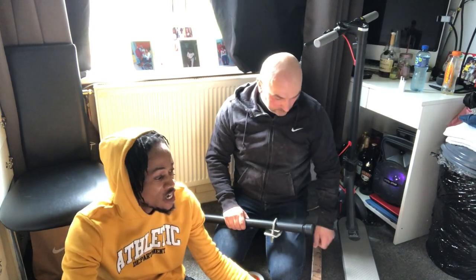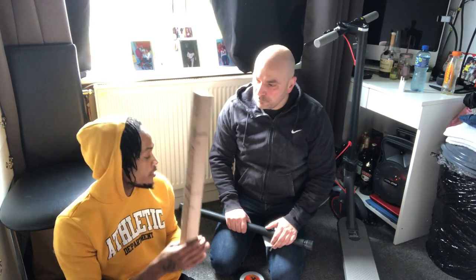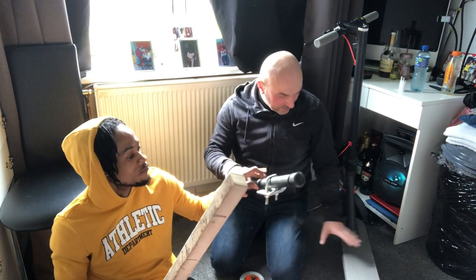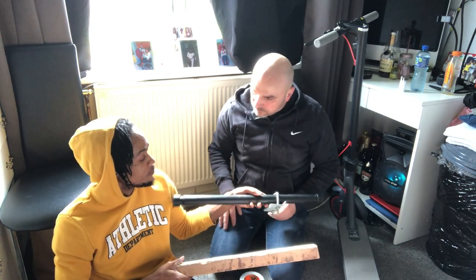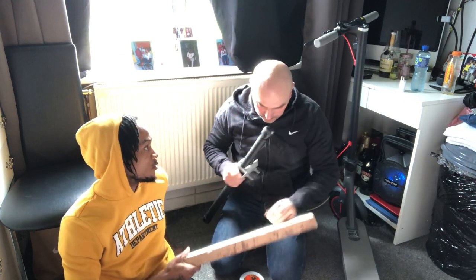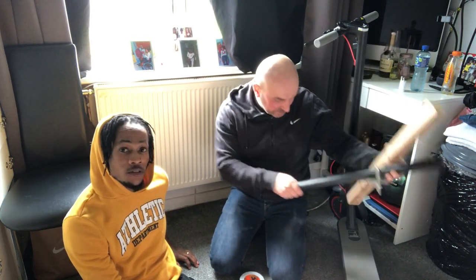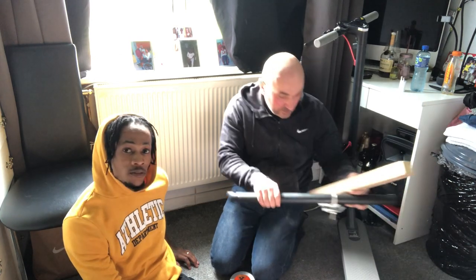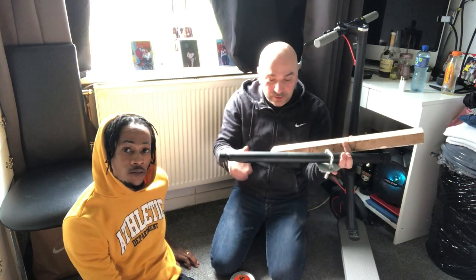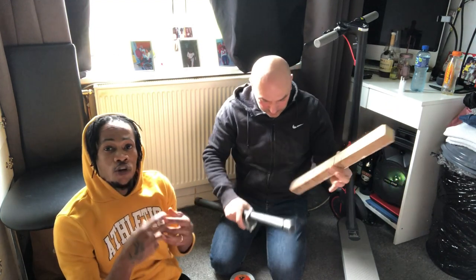So anybody who has a chair like mine and wants to put a scooter to it, you have to do it like this. For now we are building a platform on the scooter. So you explained it to them — we are building a platform on the scooter, you'll see later what's going on. On this platform will go the whole wheelchair.